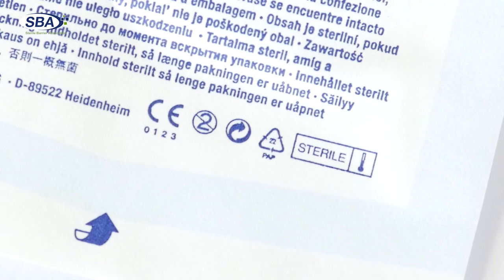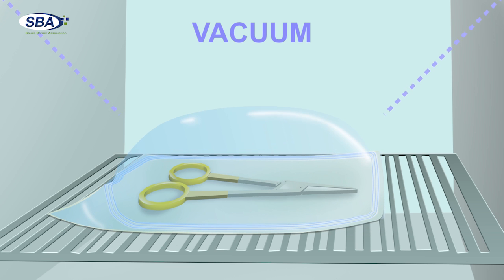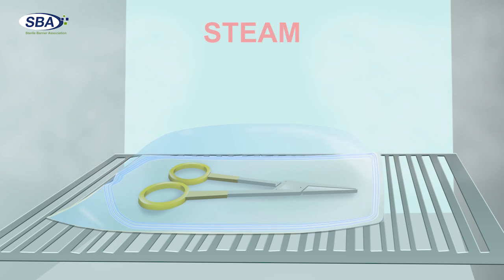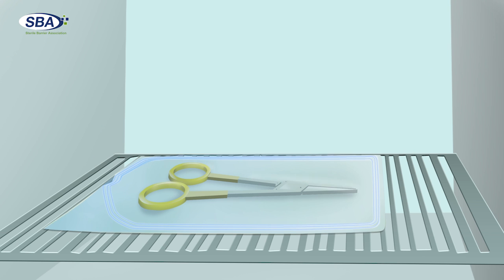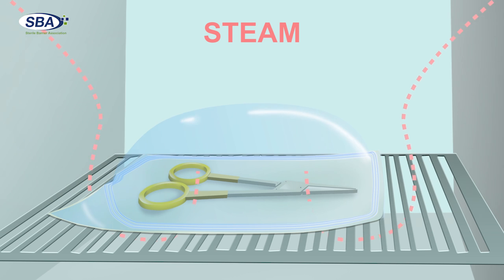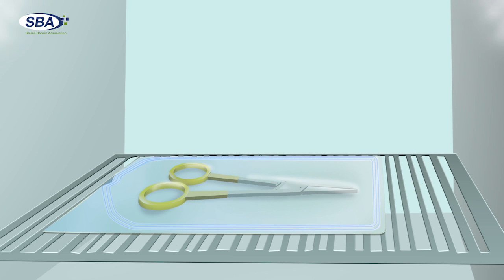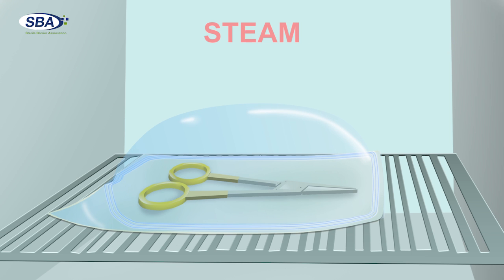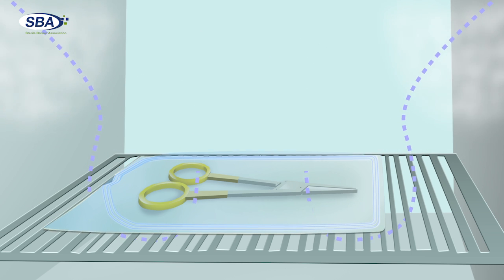Steam sterilization is commonly used in hospitals and is typically carried out in a sterilizer using steam heated to 121 to 134 degrees Celsius. Steam destroys organisms by coagulating the cell protein and rendering them inactive. Steam sterilization is very effective but can be overly aggressive for some device components or the materials of the sterile barrier system, and cannot be used for heat or water sensitive materials. Sterile barrier systems must be porous to allow the steam agent to enter the pack and be withdrawn after sterilization.